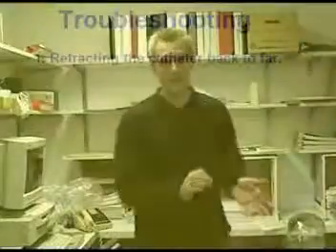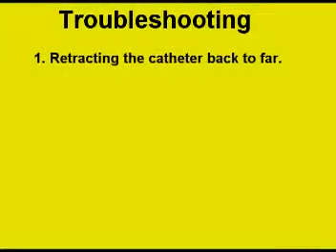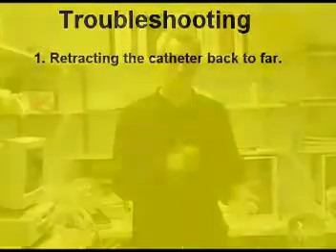Just a couple of troubleshooting techniques and things to look out for, especially as you get up and running with the Combicath. Some of the things that I see go wrong most often are, first of all, as people are retracting the catheter 2 to 3 centimeters to leave room for that inner lumen to come out, a lot of times they'll take it out 6 to 7 centimeters, in which case they're far too out of the lower lung, no longer properly wedged, and can't get a sample back because they're not even in the pool of saline that's down in there. So as you take that out, make sure that you're not retracting the catheter too far.